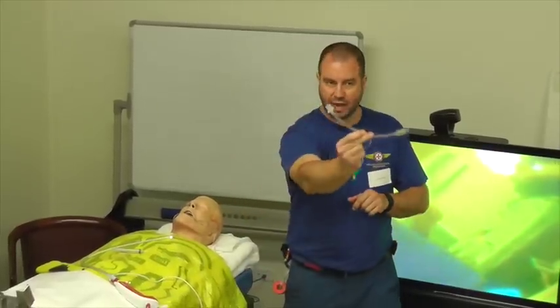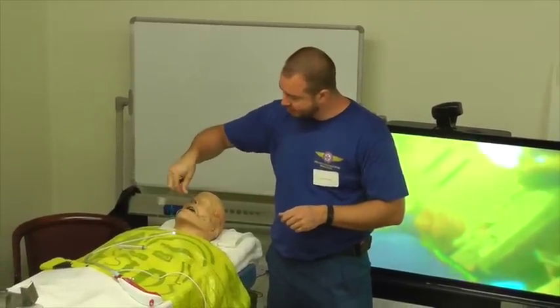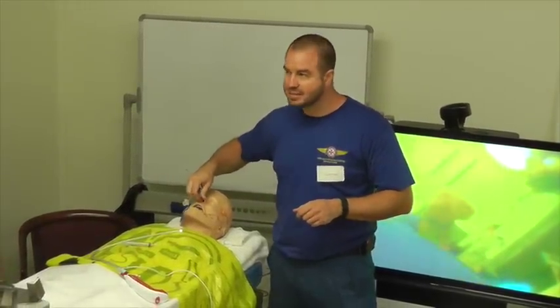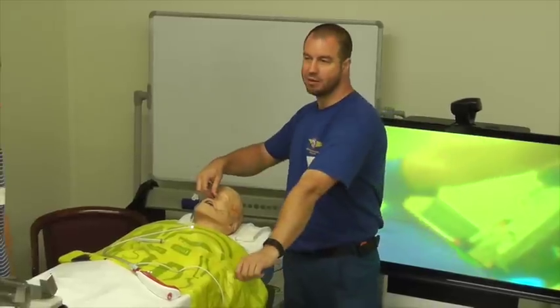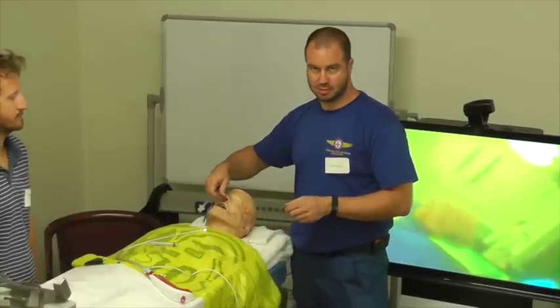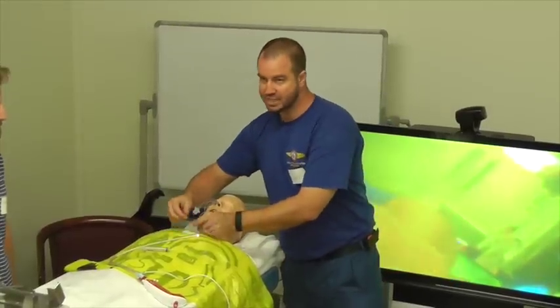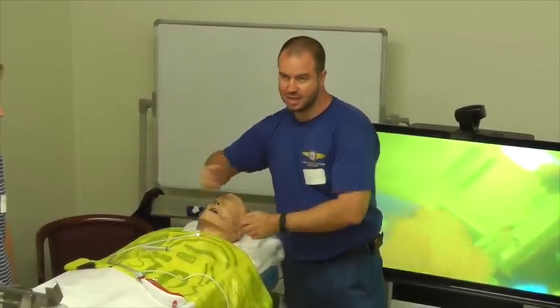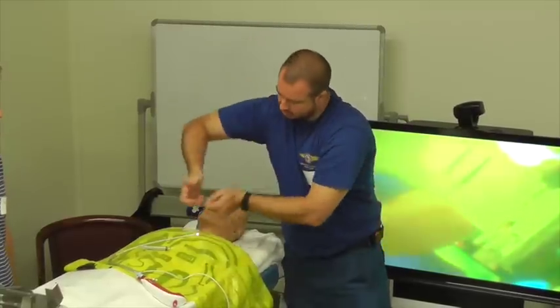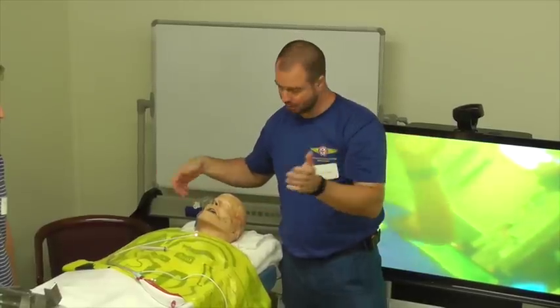Whereas if you use the endotracheal tube that you're going to intubate them with to start off with, the depth of that is going to be variable and it may not always sit in the same position. So it might be in the esophagus already by the time you put your scope in, and it means more movement. If you need to come out to clean your scope on the alcohol wipes you put onto the chest, it's further to come out and a little bit more dexterous to put it in, and it will move in and out, causing more nasal trauma, more bleeding.